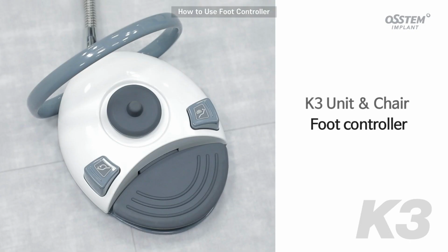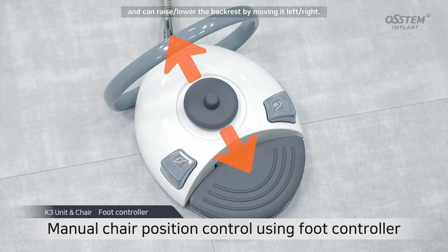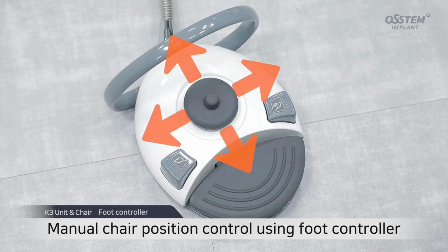How to use the foot controller. You can manually raise and lower the chair by maneuvering the joystick up and down, and can raise and lower the backrest by moving it left and right.